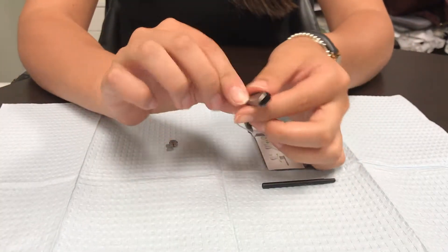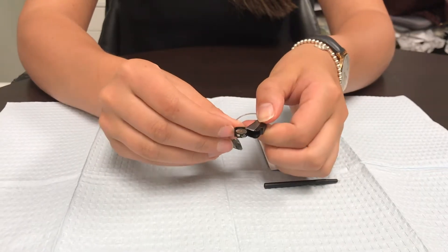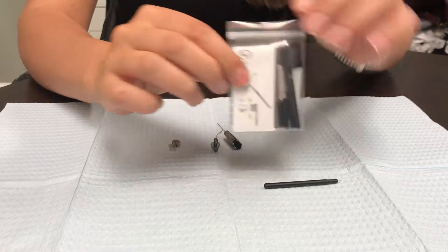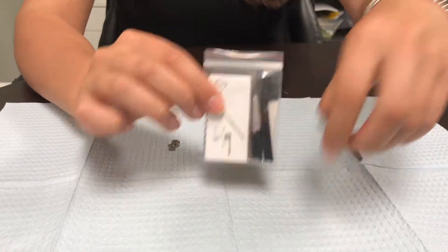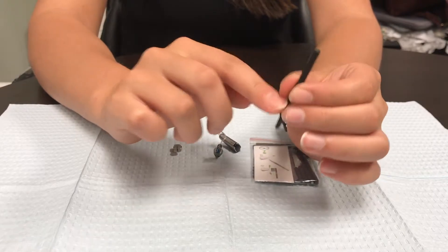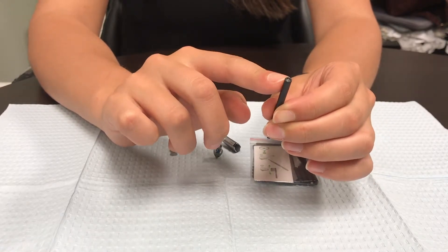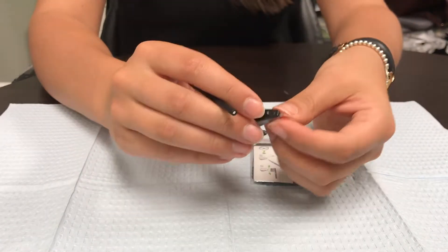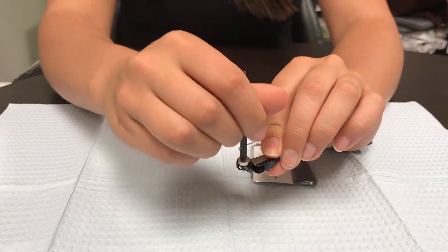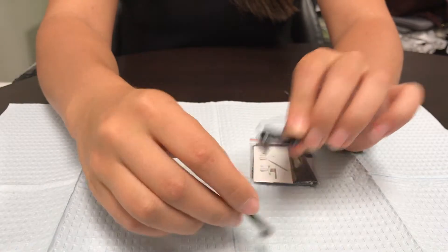The first step when you want to change your battery is to open up that battery door. If you have any dexterity problems, within the cleaning kit that we provide you, there is a tool that can help. On one end there's a wire and on the other end there's a magnet to help you remove that battery. Just open up the door and the magnet should help pull that battery right out.